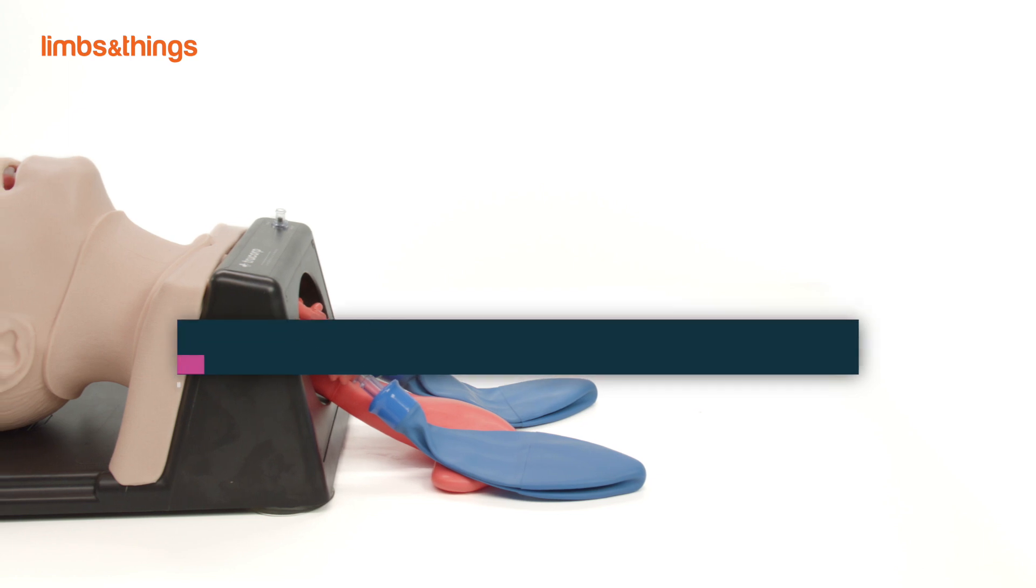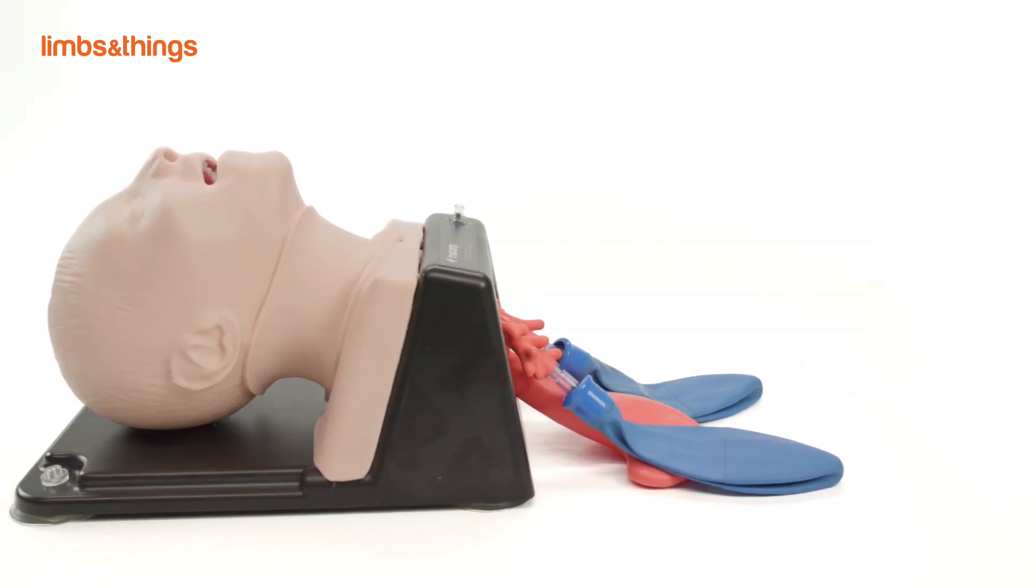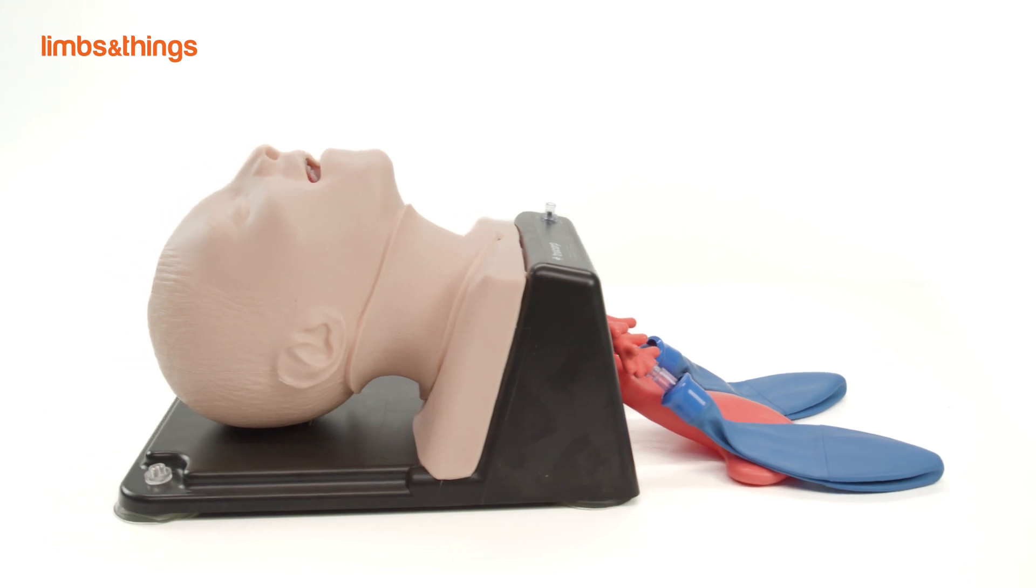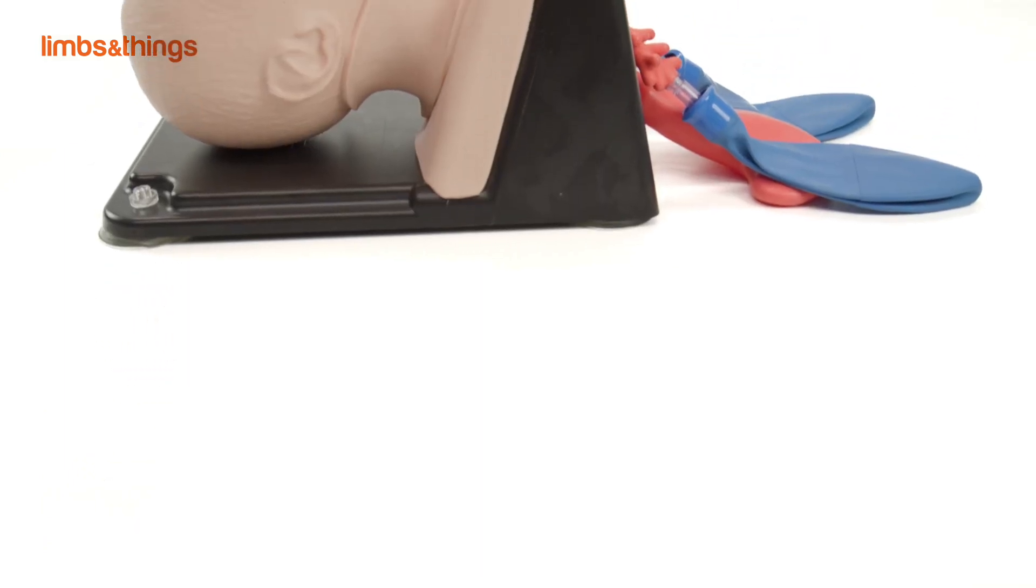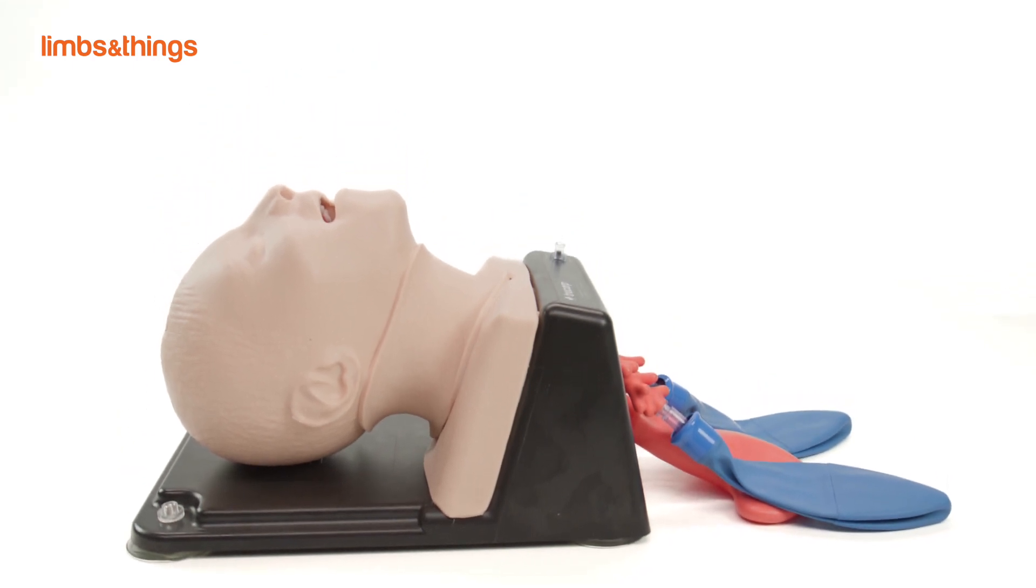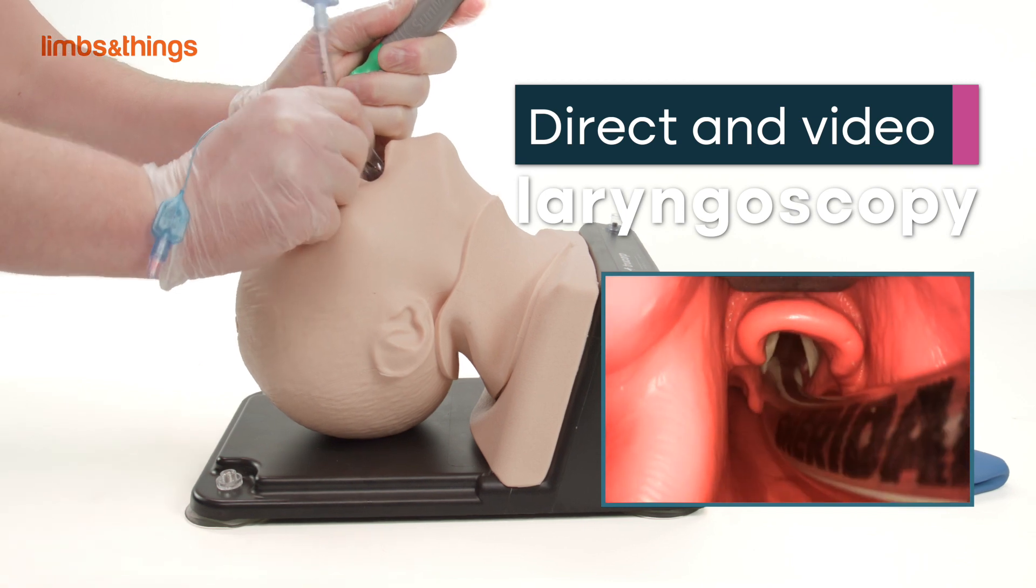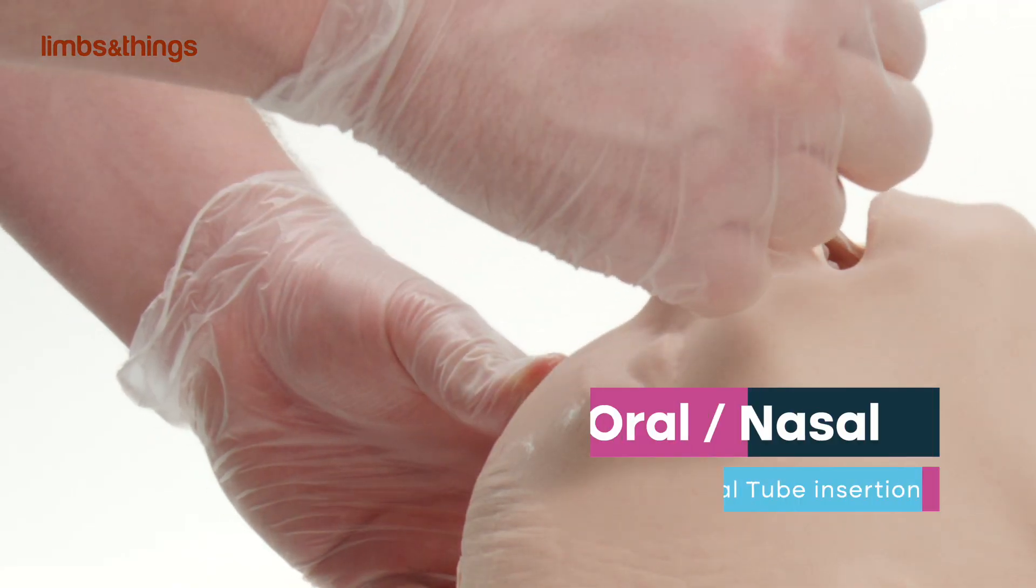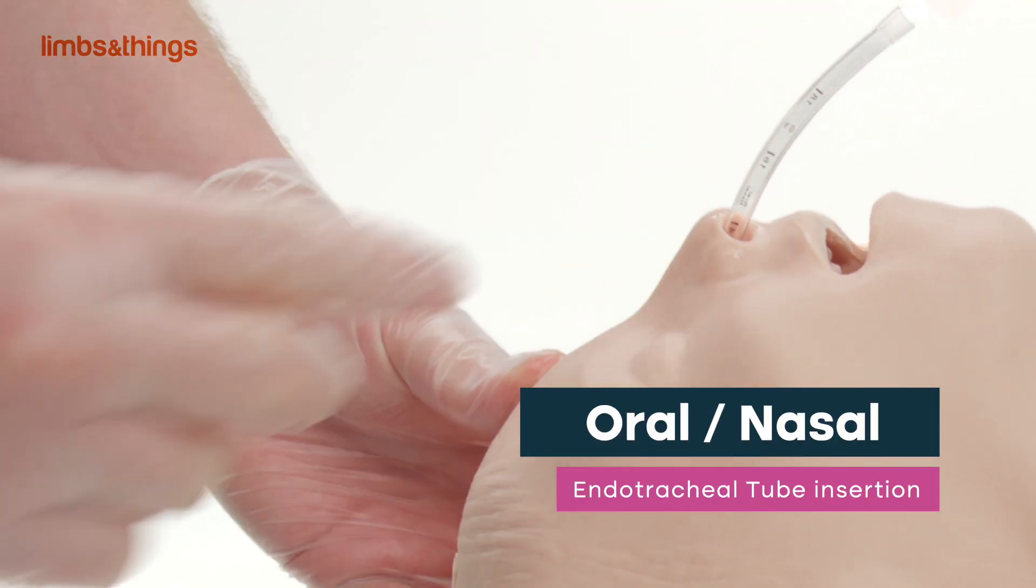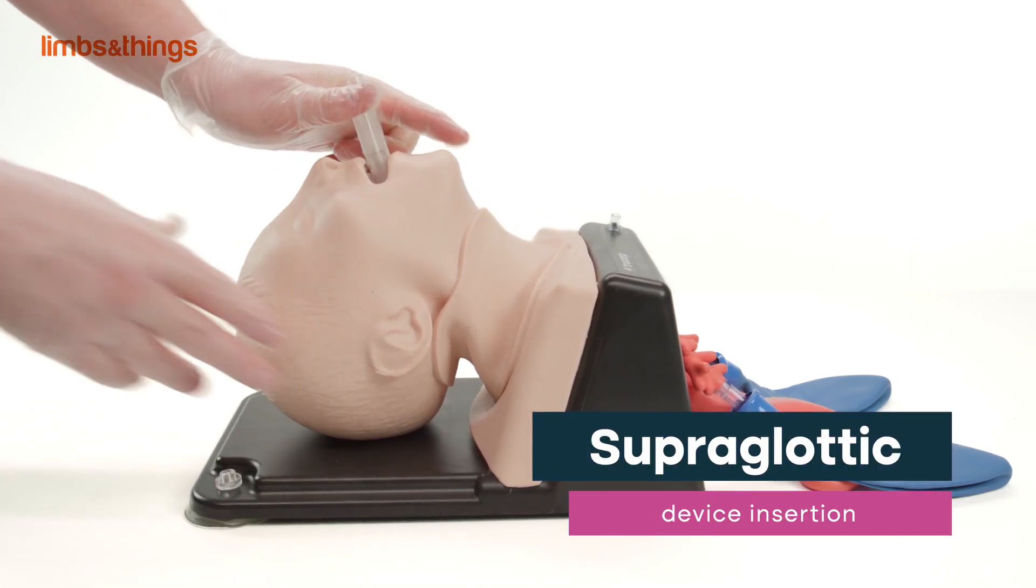The AirSim Child Combo Bronchi X is an all-in-one solution for pediatric airway management techniques including intubation, tracheostomy, cricothyroidotomy, and diagnostic bronchoscopy. Suitable for training in direct and video laryngoscopy, oral and nasal endotracheal tube insertion, and full range of supraglottic airway device insertion.